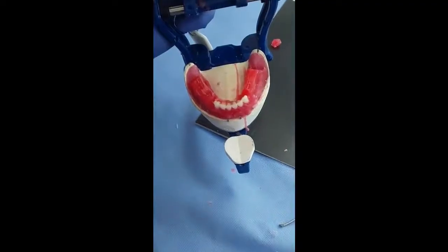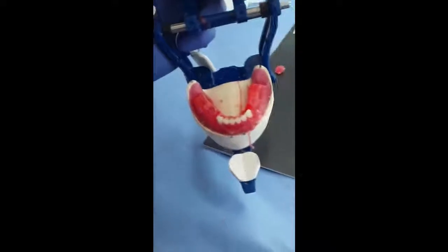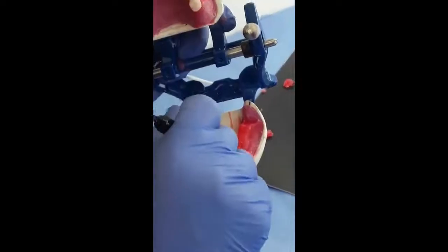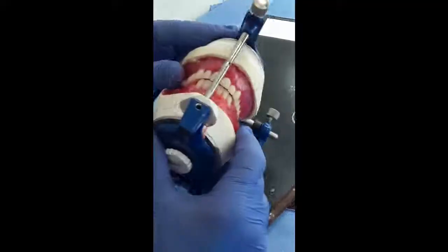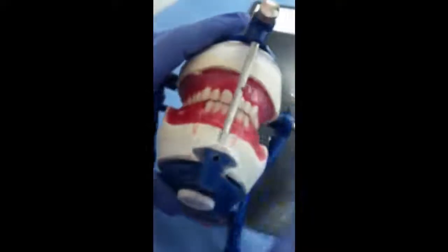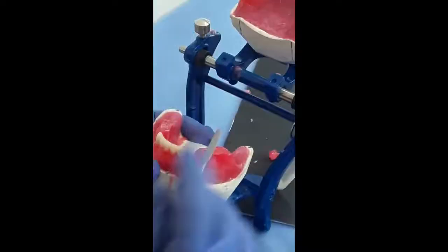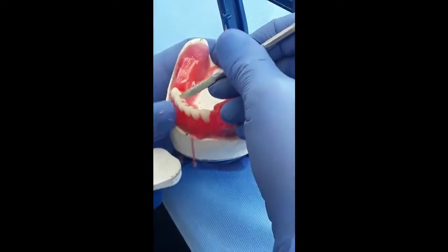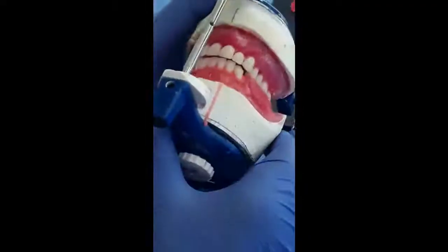After I finish the sitting of the 6 anteriors, and while the wax is still soft, I can do some final adjustments. Okay. Now you can notice here that I have an equidistance overjet. Long axis is more distally. The lateral, I need to push the neck of the lateral so the tooth will be in vertical position buccolingually.